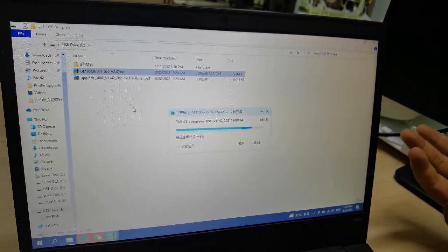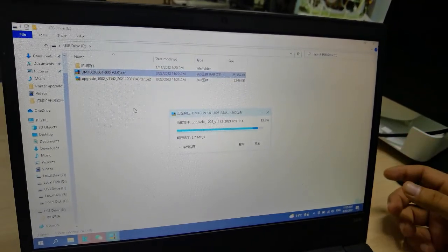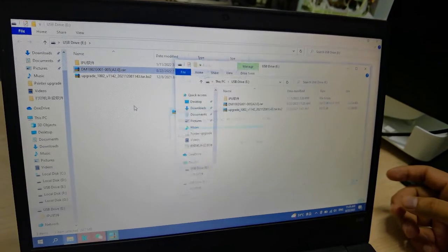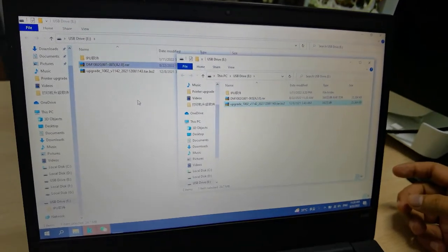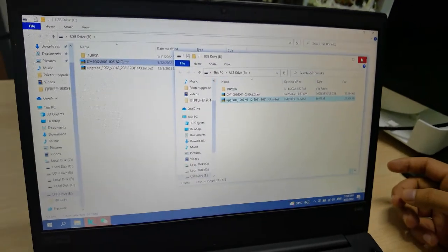Nothing to do. Now I will remove the flash drive from the laptop and then connect it with the analyzer, then I can upgrade it directly. Let me show you.